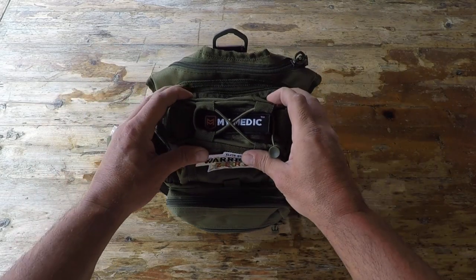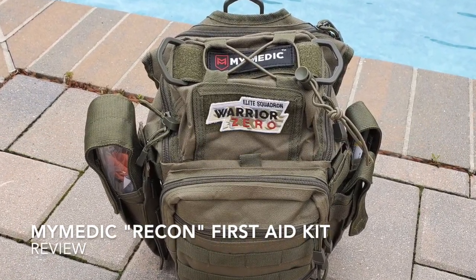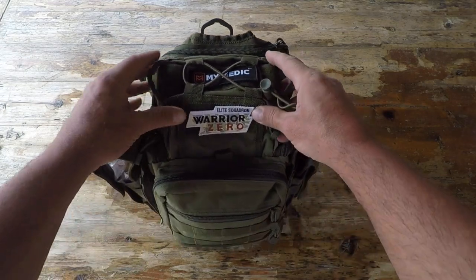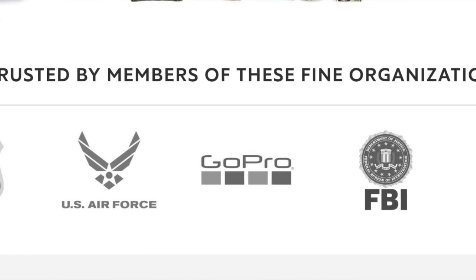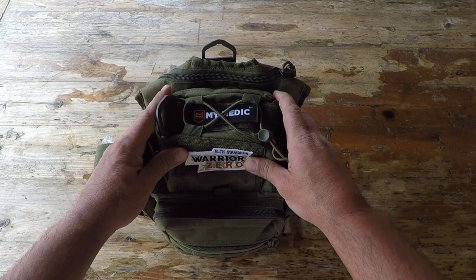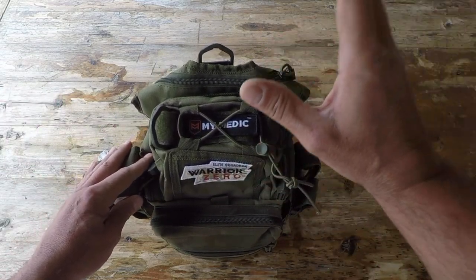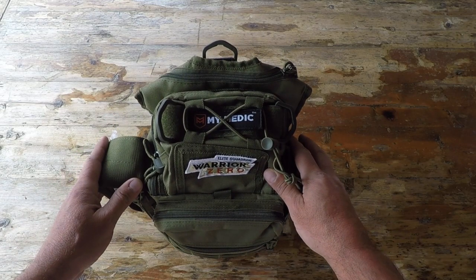Hello, it's Helder here. Today I want to talk to you about this new kit that I picked up — a first aid kit by My Medic. I have been seeing My Medic advertise for the last couple of years all around social media, and what piqued my curiosity is that they have been combining with some very credible organizations, where these organizations are making My Medic basically their go-to first aid kit. So of course, that piqued my curiosity and I wanted to put it through my review process. I was fortunate enough to have My Medic send me one of their Recon units.